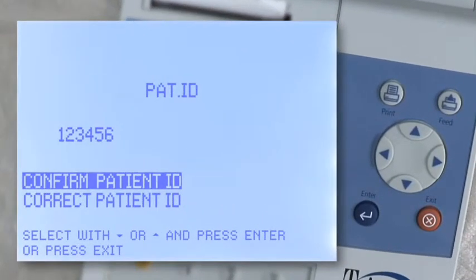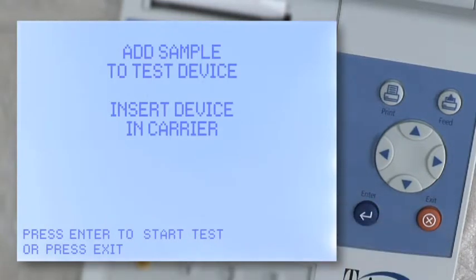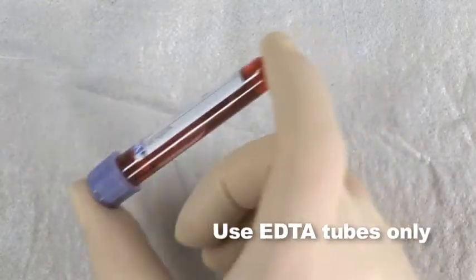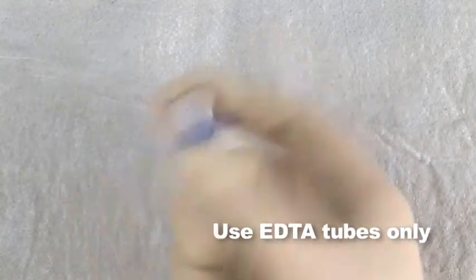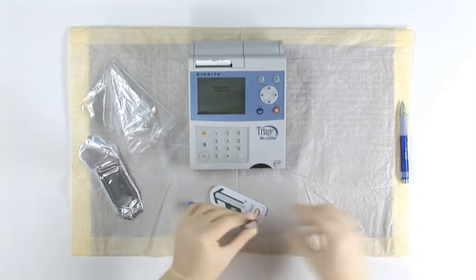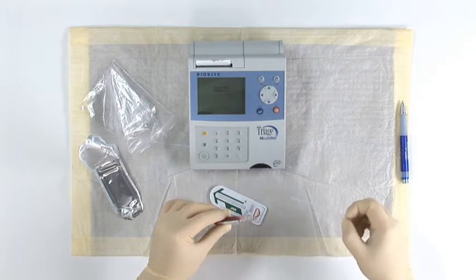If the patient ID number you entered is correct, then press Enter at the Confirm option. The meter advances to the next screen. The Triage meter instructs you to add a patient sample to the test device and insert it into the carrier. Now, invert the patient sample several times to ensure it is homogeneous, and drop the sample into one of the disposable pipettes provided with the kit.